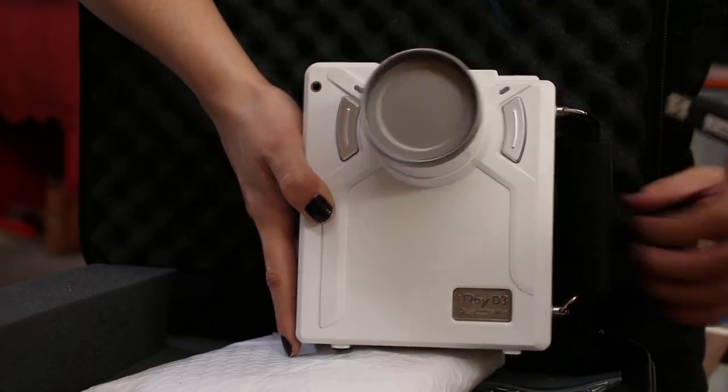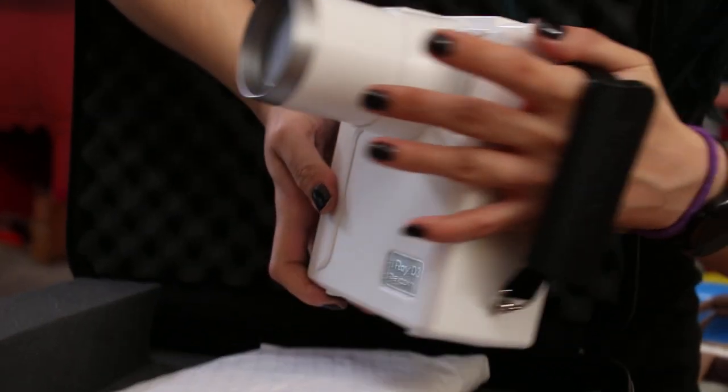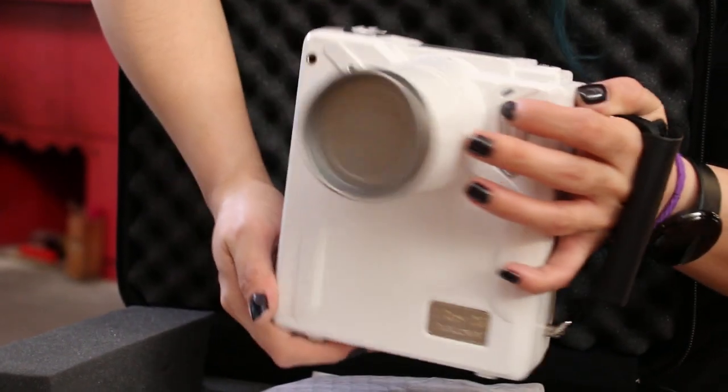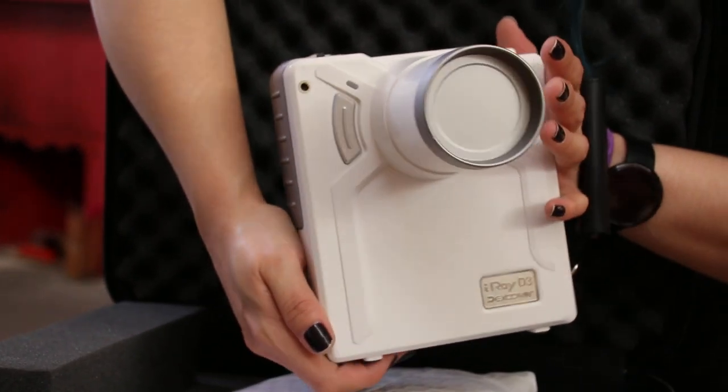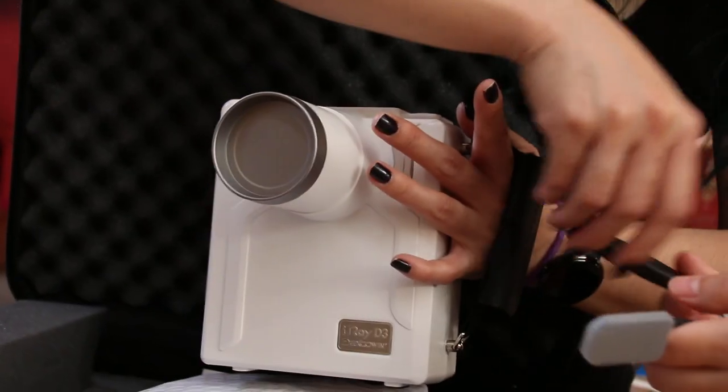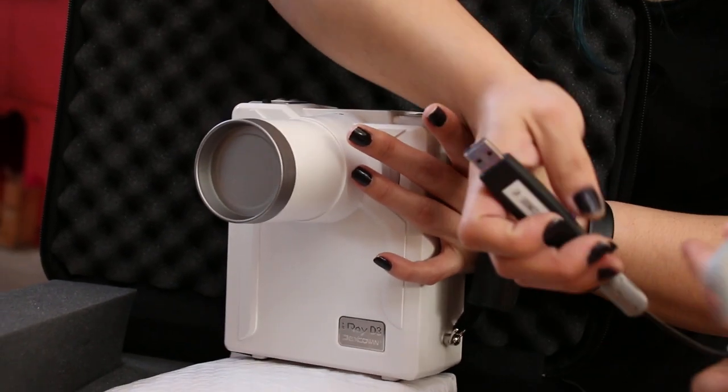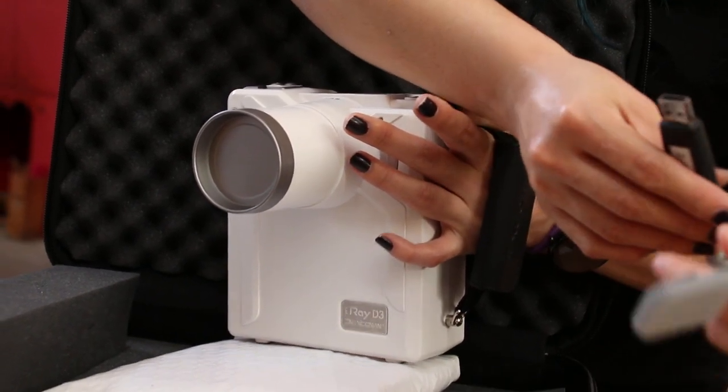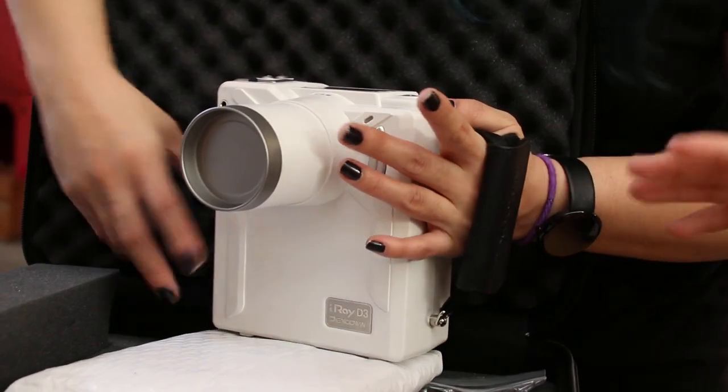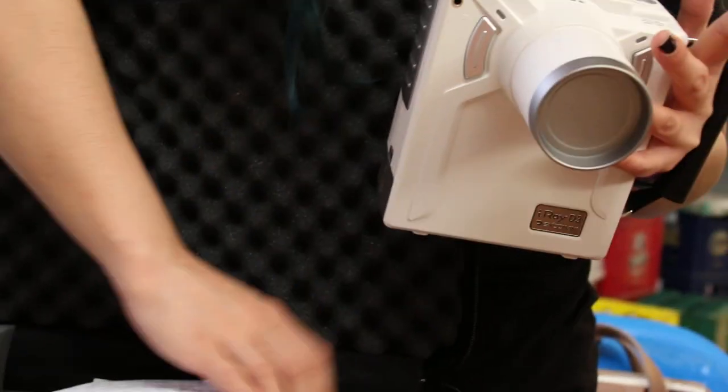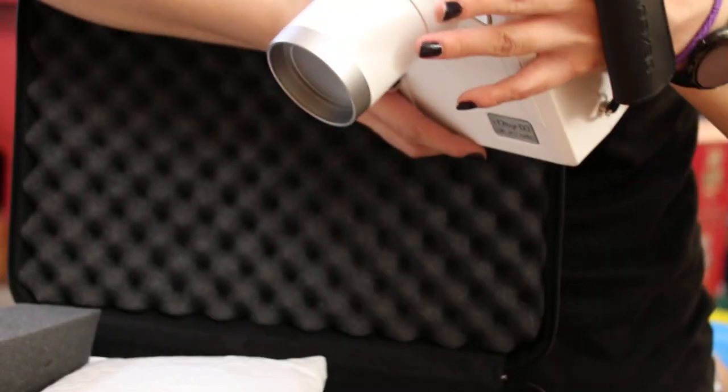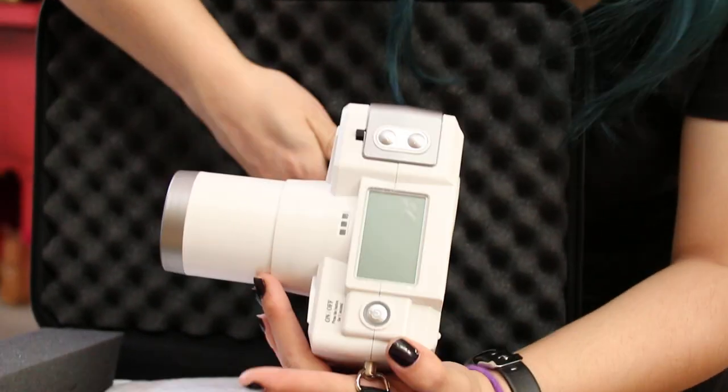It's a veterinary dental x-ray, portable type. You can connect with either a digital sensor direct or CR. CR means you have a phosphor plate and then you have to do an image processing after that, then you can see the image to your PC.